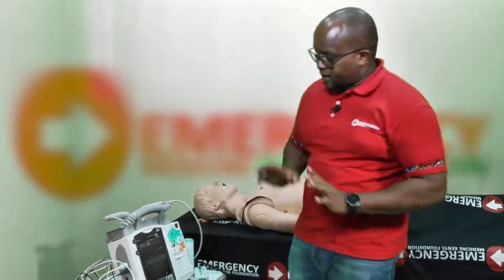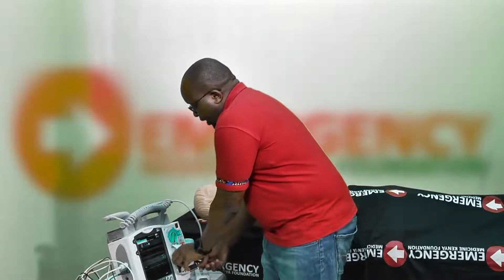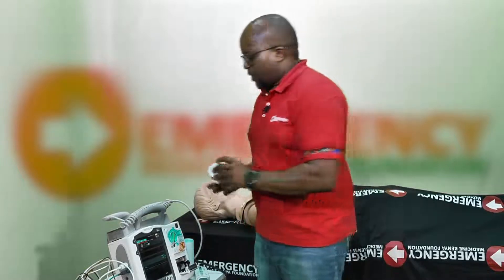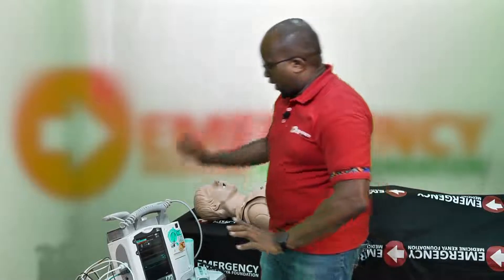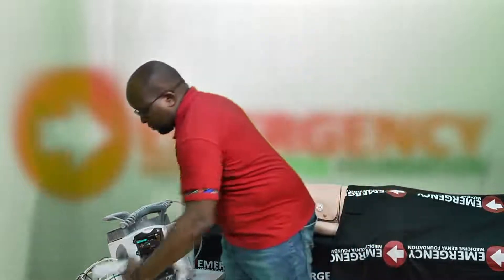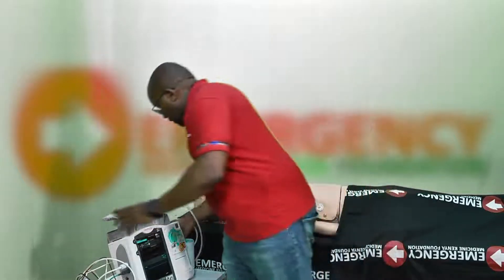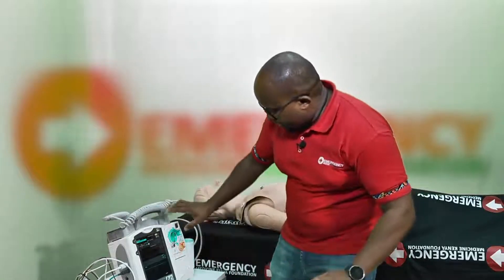Now that the check is complete, I'll switch back to paddles. I disconnect the test load and reconnect the paddles. At this point, the defibrillator is connected to power, everything looks fine, and we are ready to start using the defibrillator on a real patient.